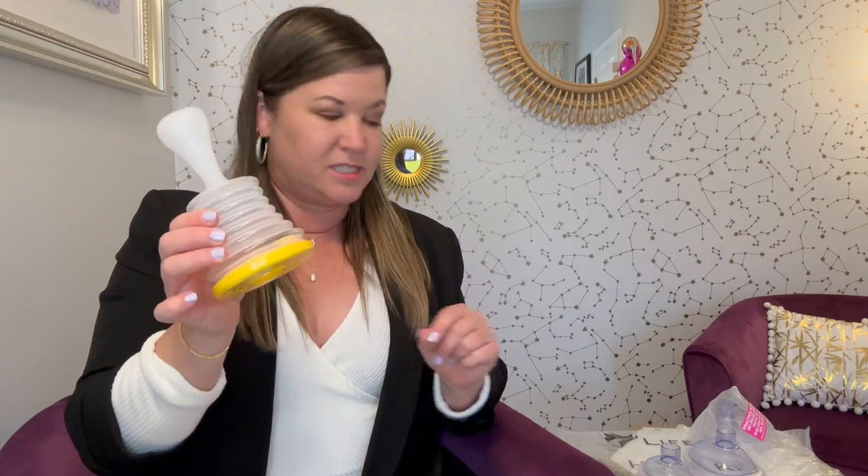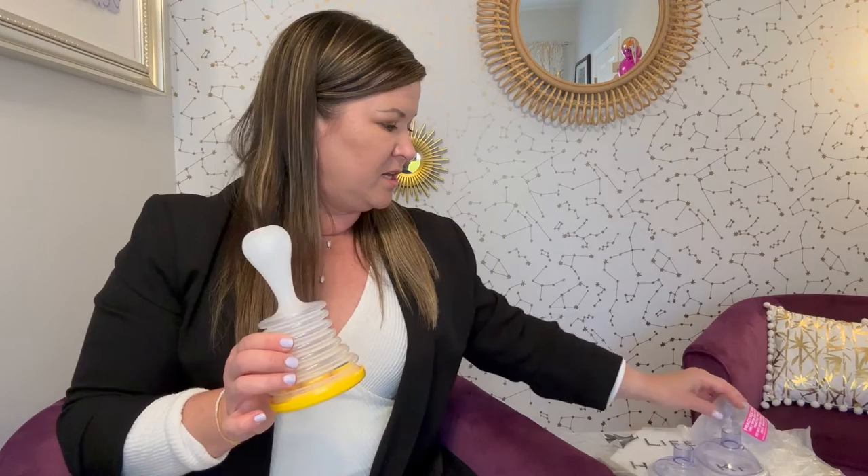They sent me one and I was just really grateful that I know about this now, and I wanted to share that information with you. The home kit is the plunger, the two masks, and the practice mask. You should open the practice mask and not open the other masks until you actually need to use them.